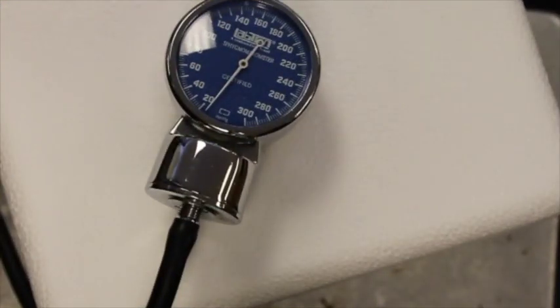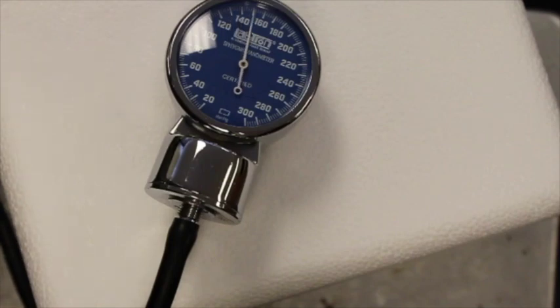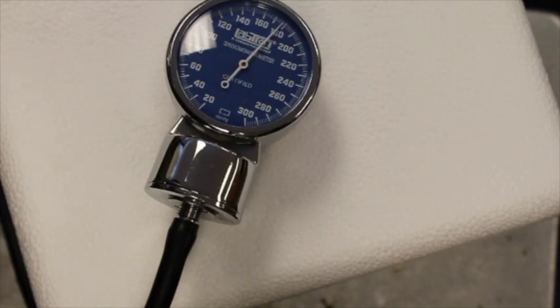All right, so now I'm going to take my blood pressure at rest. And you can basically estimate this. This will be the first data point you're going to add. I'm pumping up the pressure cuff here, and then I'm going to slowly let it out.